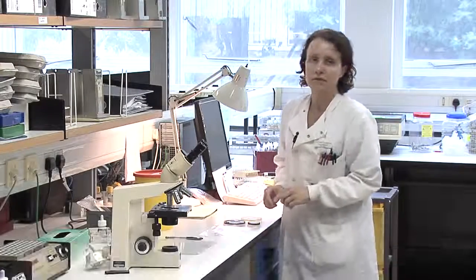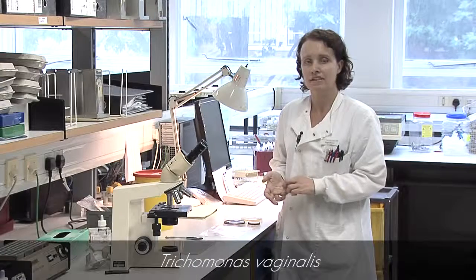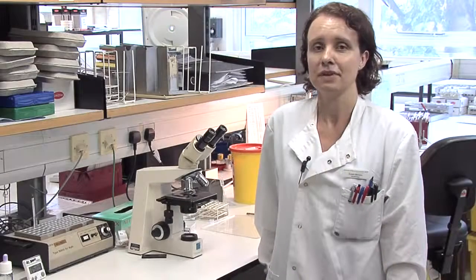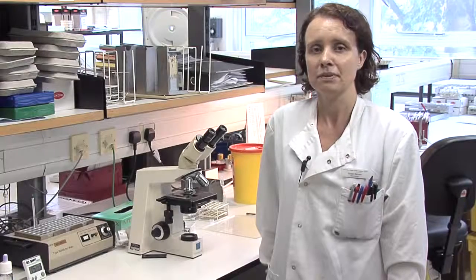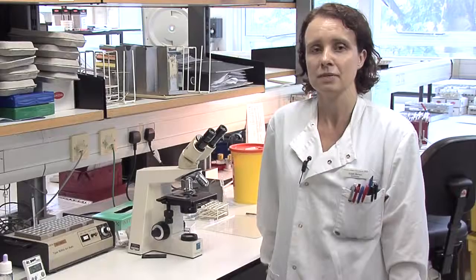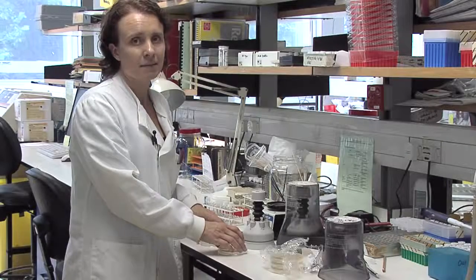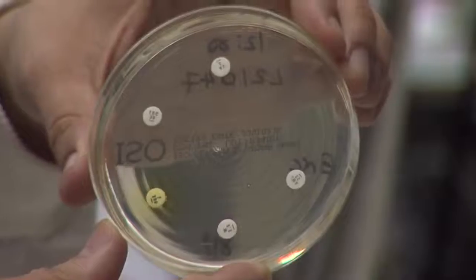We would also do microscopy for a parasitic infection called Trichomonas vaginalis and an infection called bacterial vaginosis. We also have a neonatal screening bench where we screen newborns for the signs of infection because they're immunosuppressed, so they need to be regularly monitored, and if they've got signs of sepsis, then screening swabs and other appropriate samples will be sent.